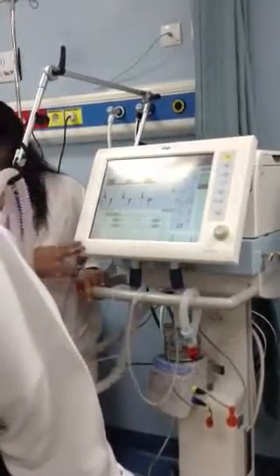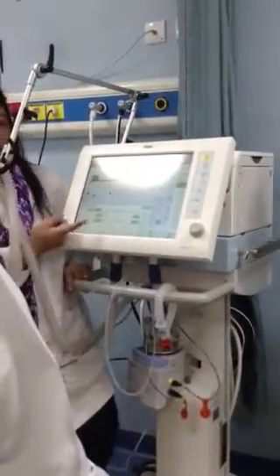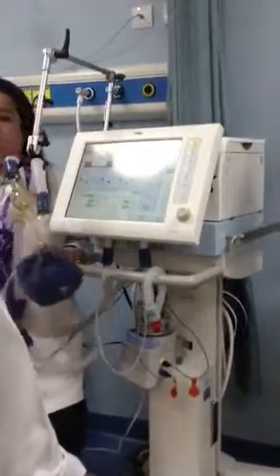Question for your Evita. Your Evita is adult, pediatric, and neonatal. Your Savina is for adult only, and that one is only volume control. Walang pressure yan, kaya adult lang.